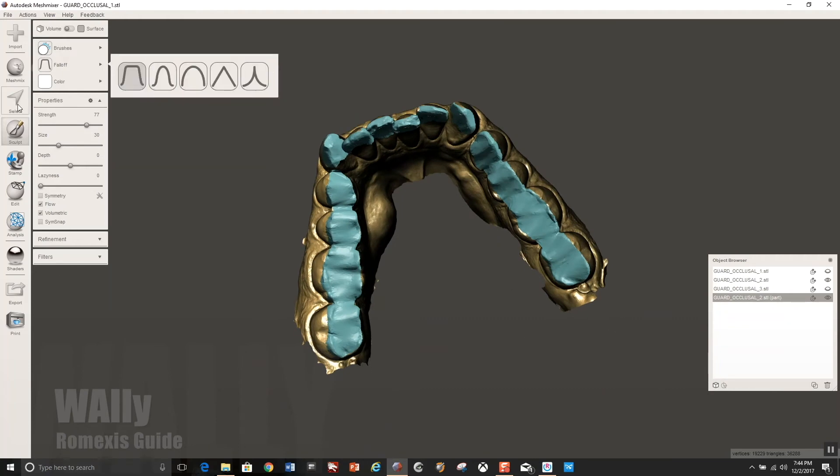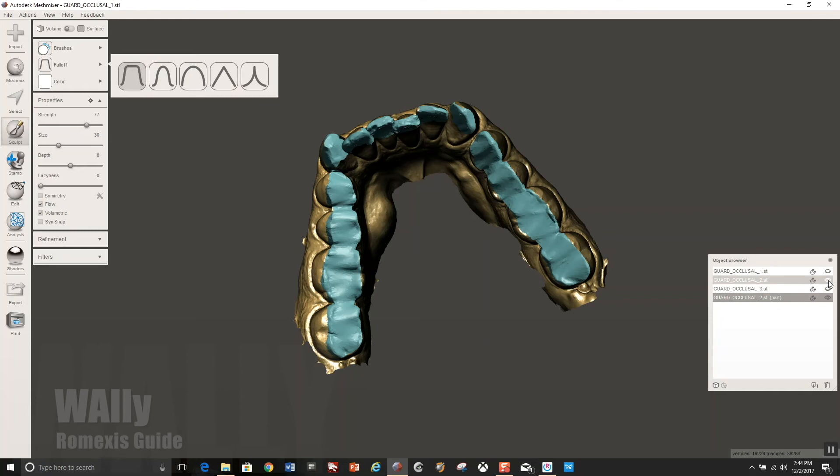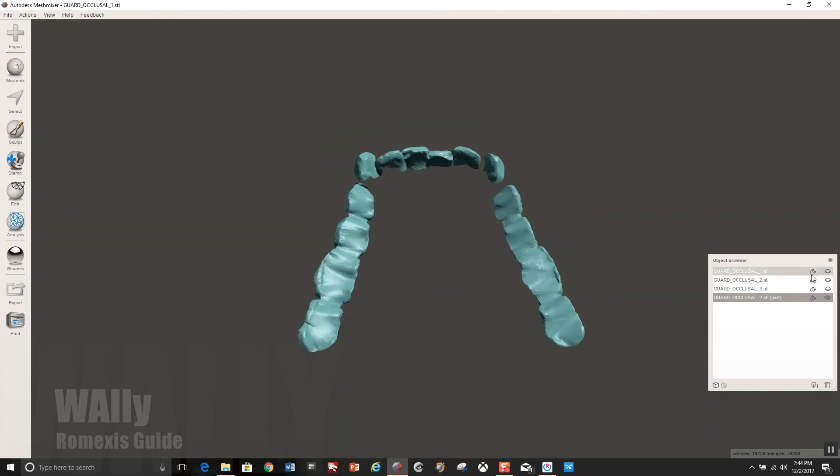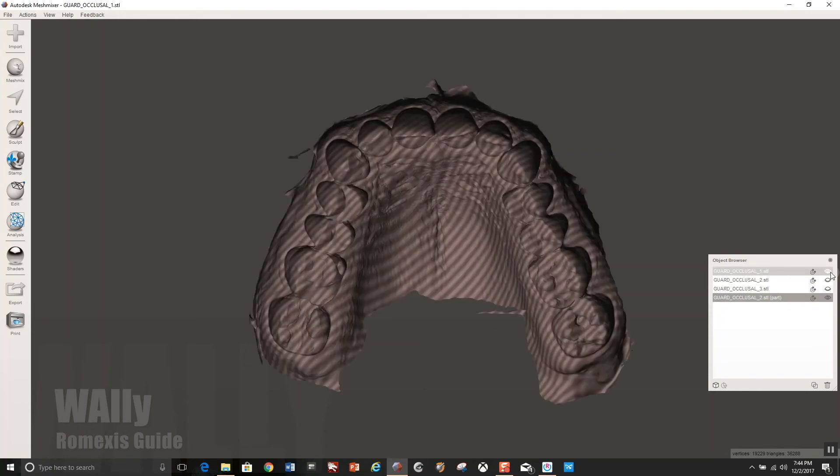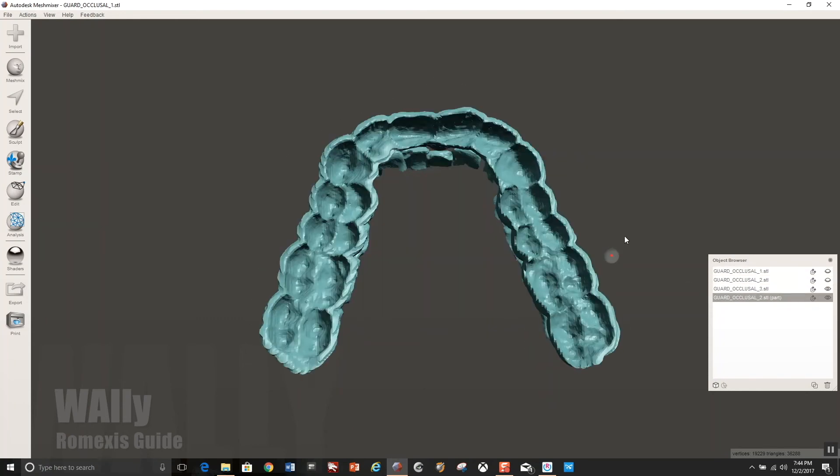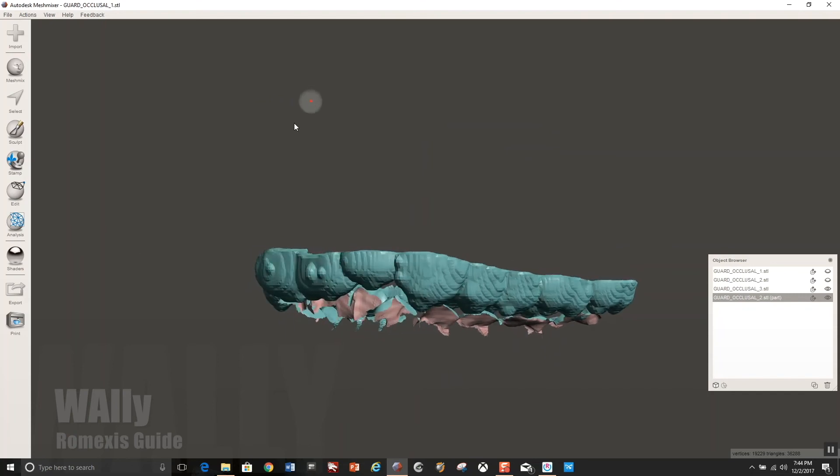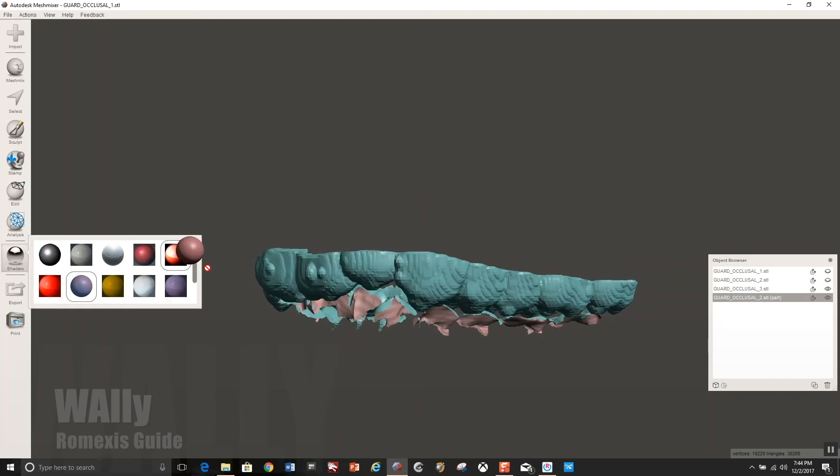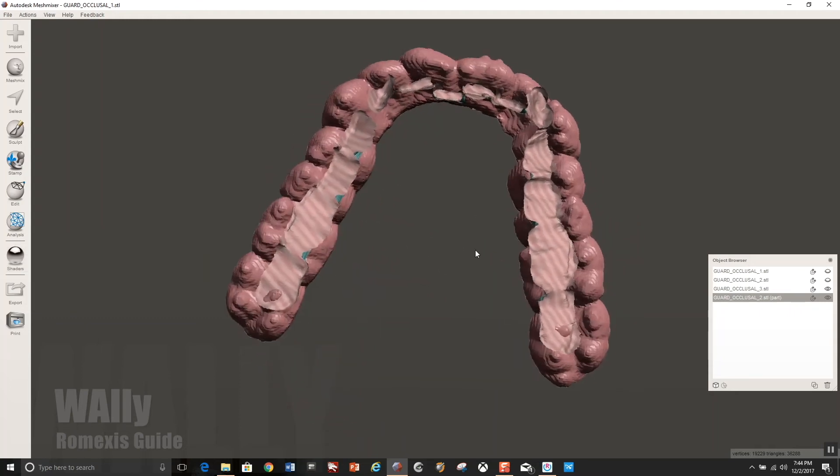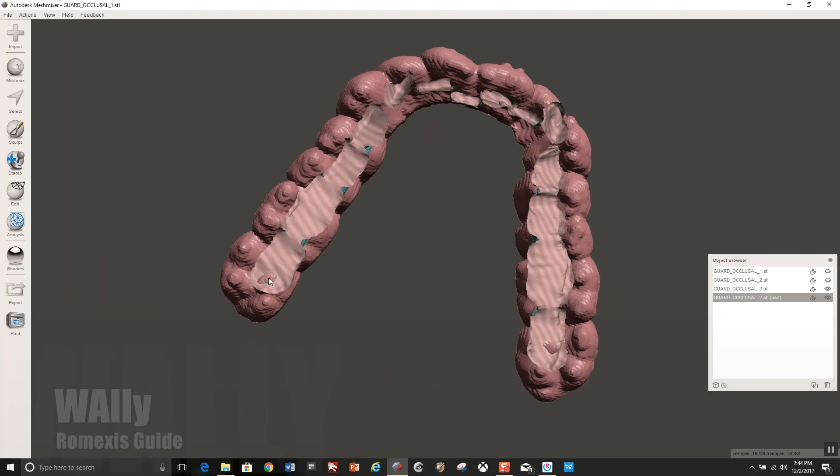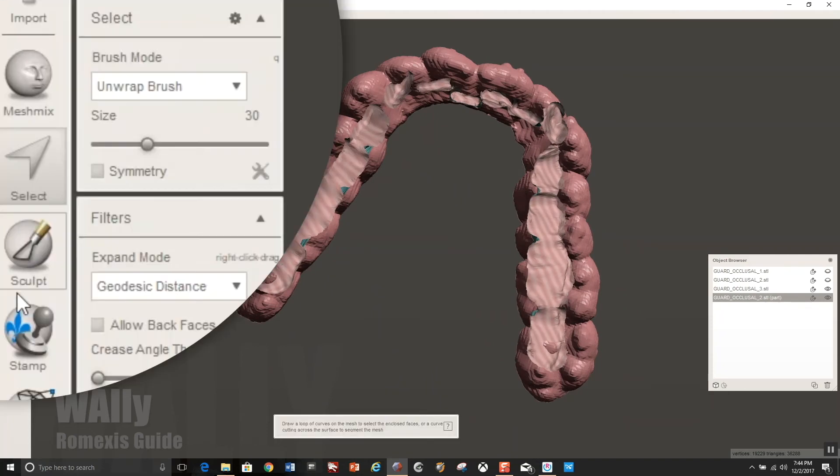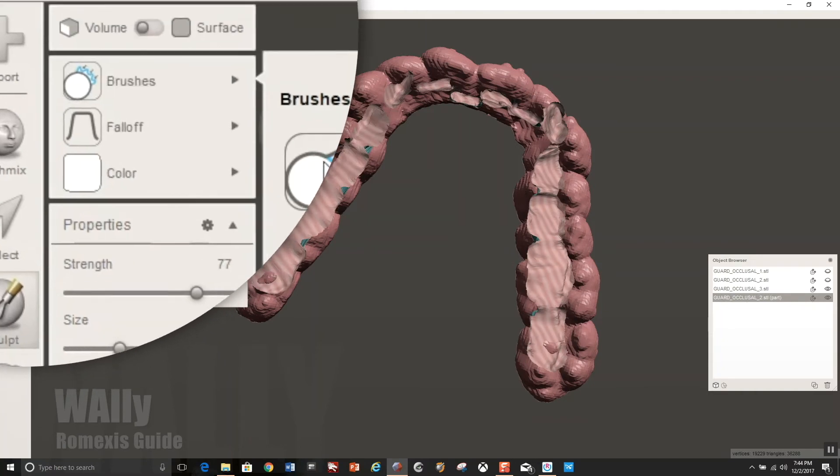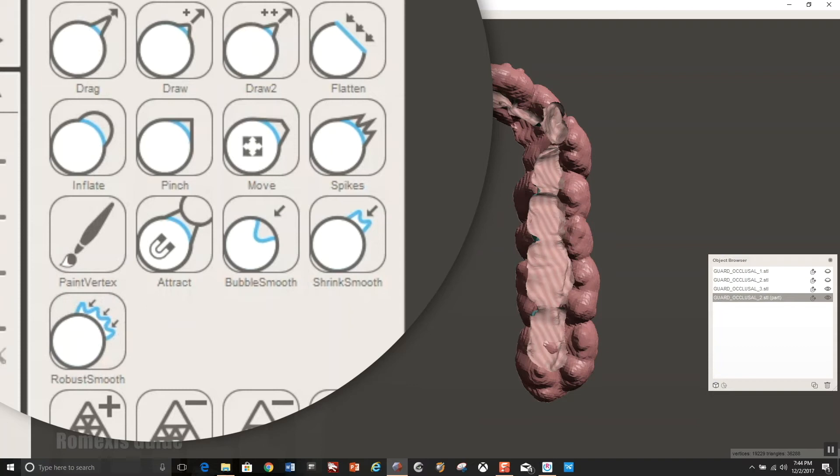All right, so now what you're going to do is you're going to remove or decrease the visibility of the other models and I'm going to turn on the guard. And so we can see we have space between the guard and the opposing. And what we need to do now is basically fill in that space and there's kind of an easy way to do it. Before you start to fill in the space, you want to make sure you don't have any areas poking through. This sometimes happens when you have a one and a half millimeter thick guard from the STL export.